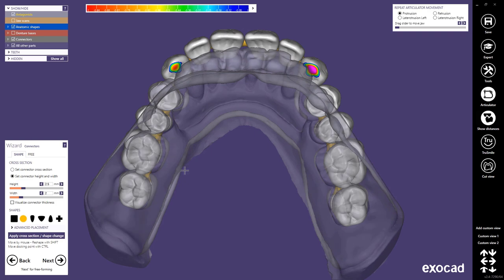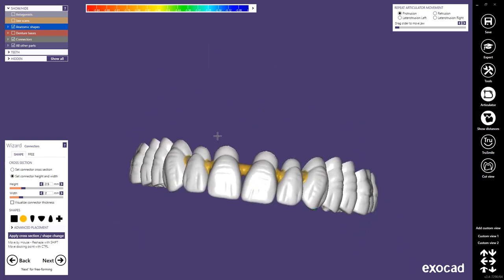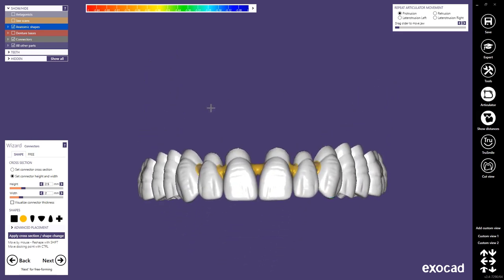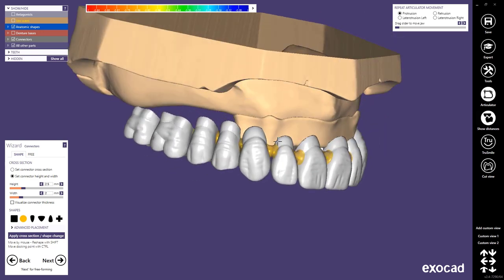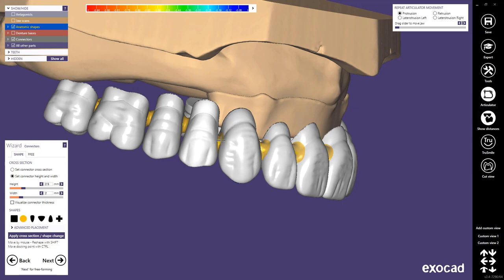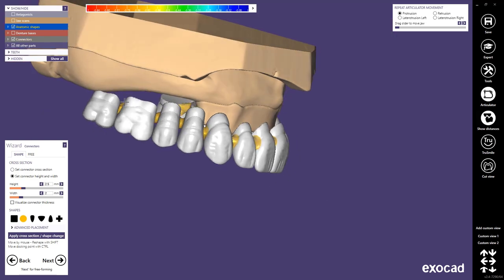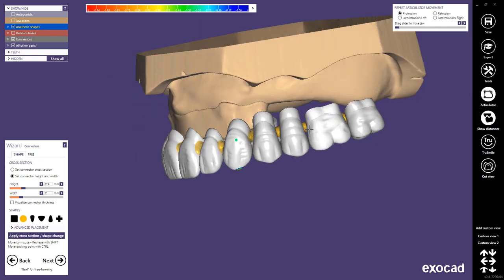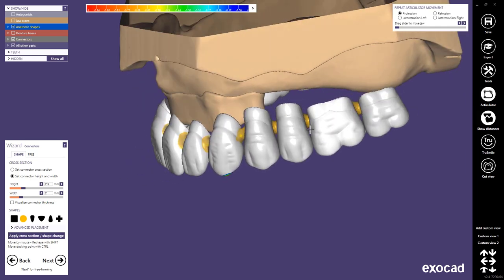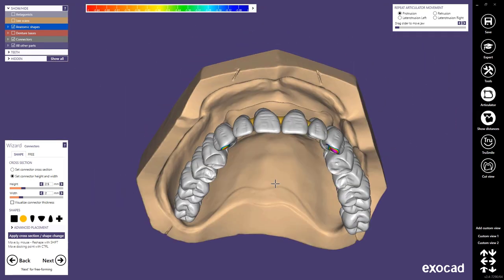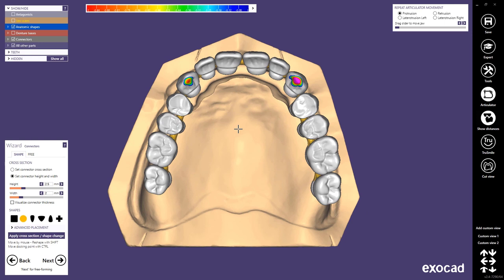Since we selected the connectors in the dental DB, the connectors are our next step. You can use those to create a complete bridge out of your individual teeth so you don't have to mill or print all of them singular but can mill or print a complete arch. The connectors should ideally not be placed inside of the model, because if they intersect the model and the model gets cut away as the bottom part of your denture base, the connectors would be cut away as well. On the other hand I would also not place them too high up in the approximate contact points because this wouldn't look very nice in the end.